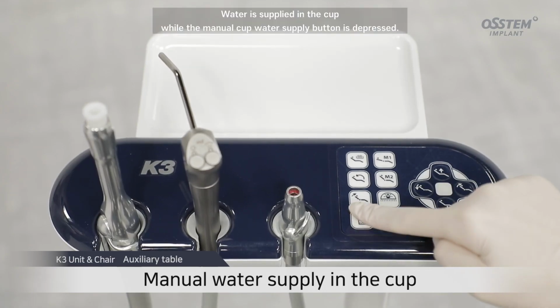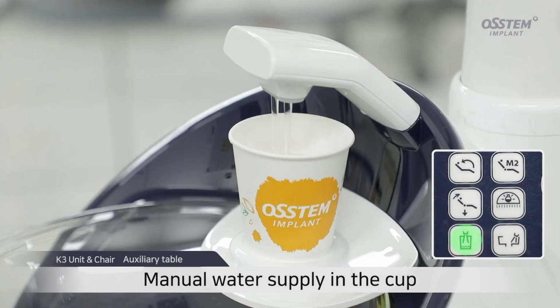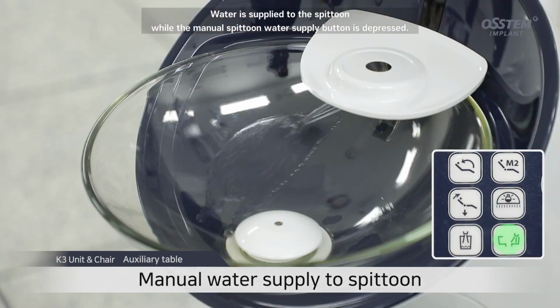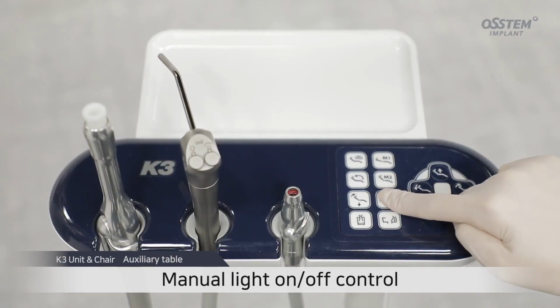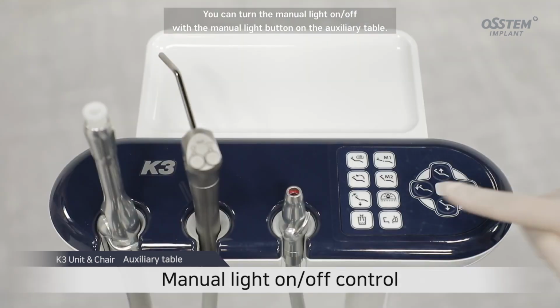Water is supplied to the cup while the manual cup water supply button is depressed. Water is supplied to the spittoon while the manual spittoon water supply button is depressed. You can turn the manual light on and off with the manual light button on the auxiliary table.